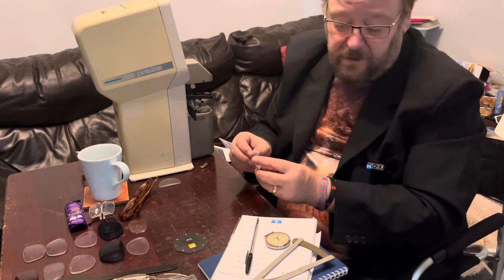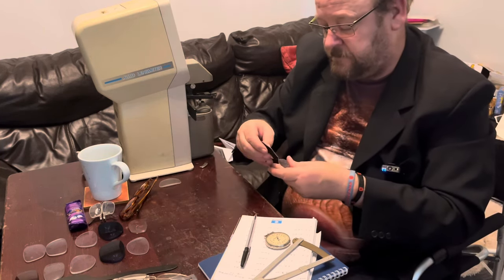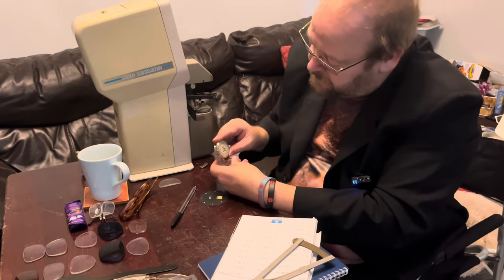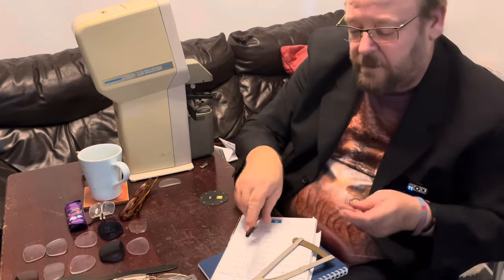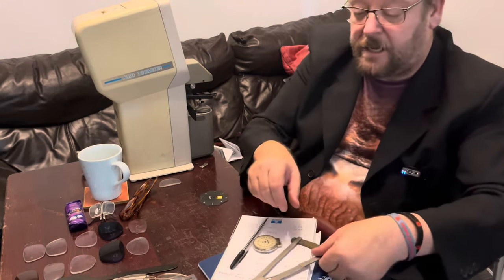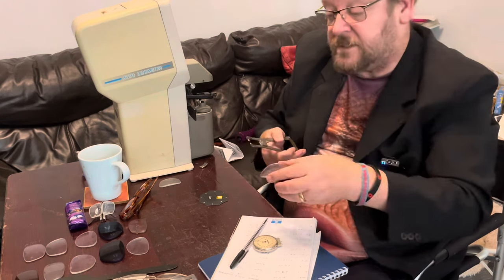I'm coming close to the end of them now, so I'm on to lens K. This one is definitely a plus lens and it's quite a heavy plus. That one's three. So the front surface prescription is plus six, the back surface is minus three, and then the center thickness — that one's 6.3 millimeters thick.